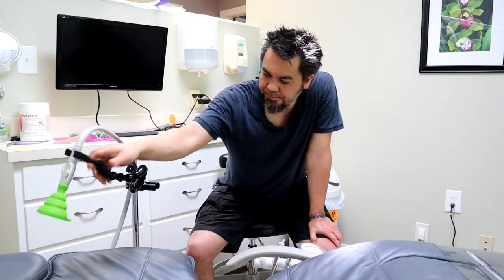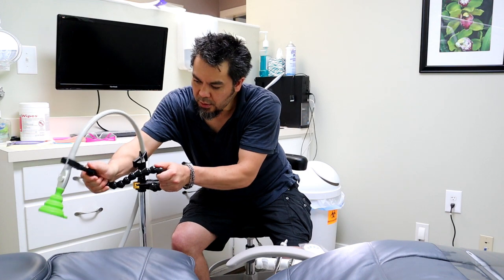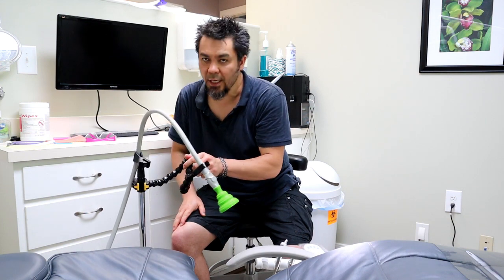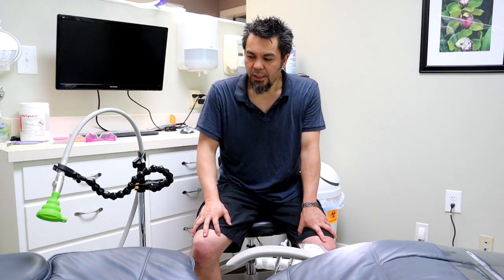So that's the basic setup — you've got the microphone stand and the PLAMP. You can move this thing around however you want, get it perfectly situated. You can swing it out of the way when needed and swing it back in. You have a good sturdy way of holding your HVE hose.